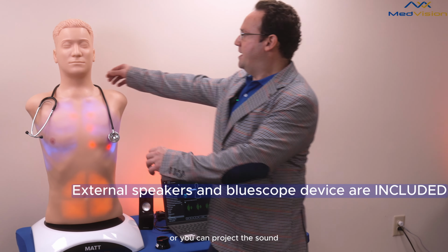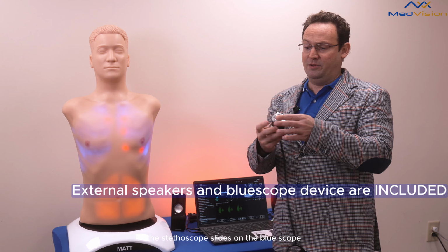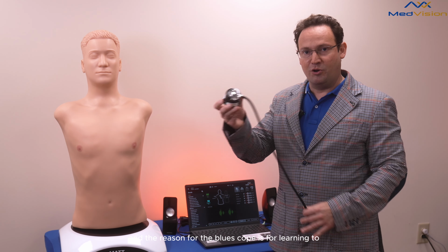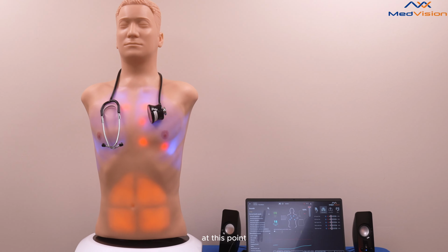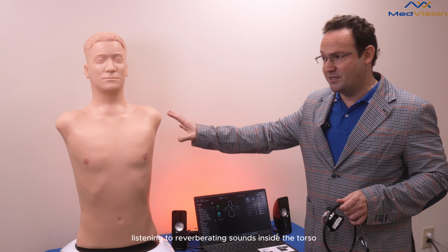or you can project the sound directly into a stethoscope using this device called the BlueScope. The stethoscope slides on the BlueScope. The BlueScope detects its position on the torso, and it'll produce the appropriate sound. And the reason for the BlueScope is that for learning, you get a very clean, very crisp, very clear sound. At this point, this is auditory learning, so you're learning to recognize, identify, and differentiate different auscultation sounds. And this prevents listening to reverberating sounds inside the torso or other unnecessary sounds.